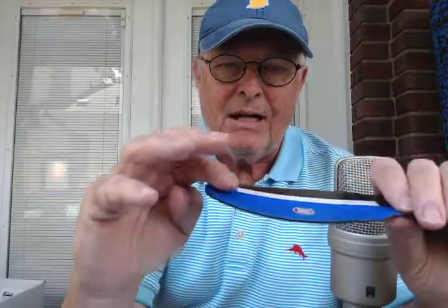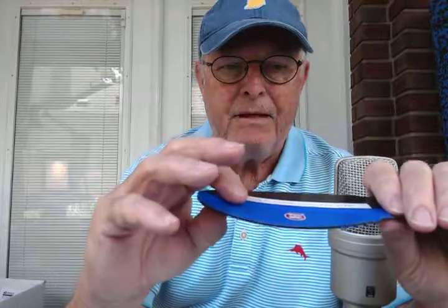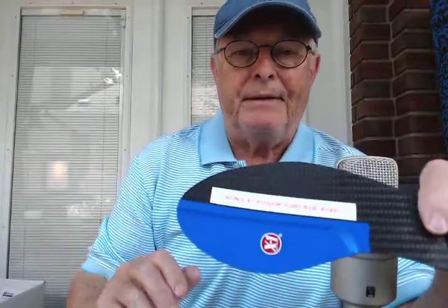So it's kind of like a walker boot in half. You can put this in a regular shoe. It's got a rocker shape to it, easily used to ambulate.